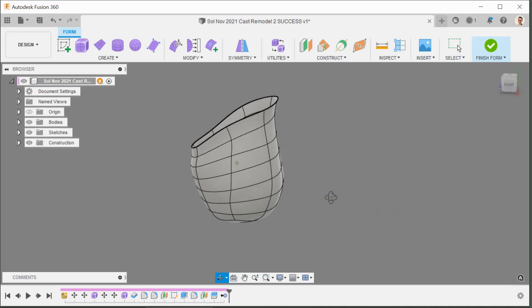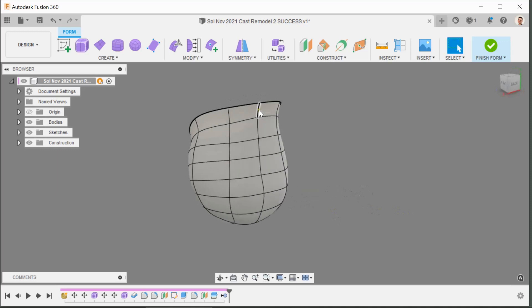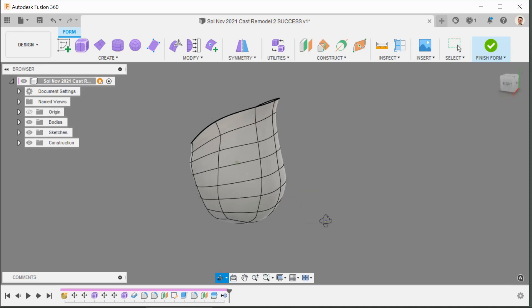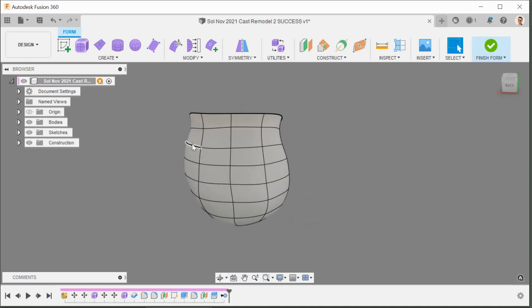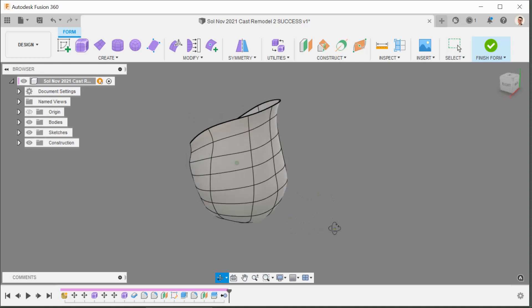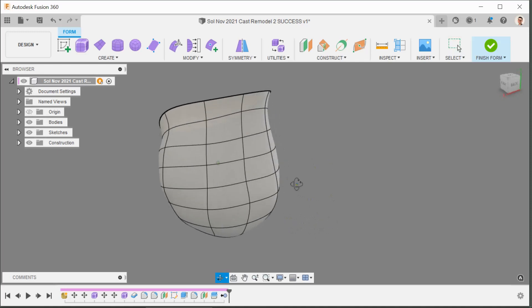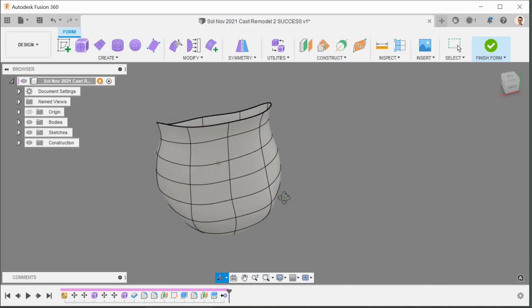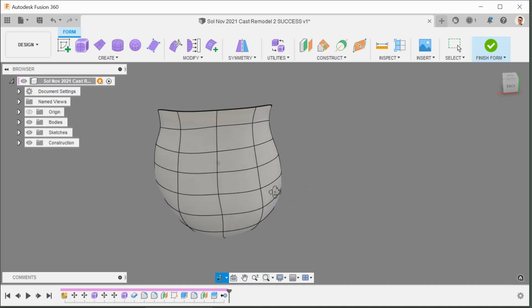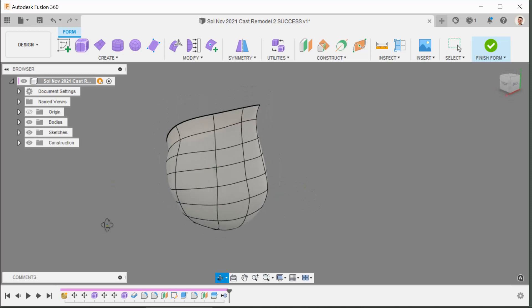This is the spline I'm interested in — this is where the air pocket is. We have Sol's olecranon here and the condyles at the sides. I could probably come in a little bit closer around those, but today I'm just going to work on the air pocket and then see if I can go more aggressive in a future test socket.